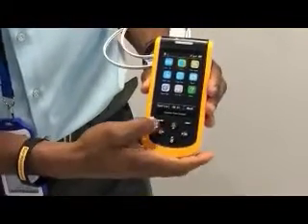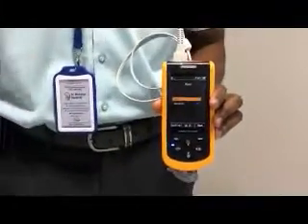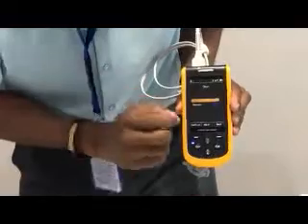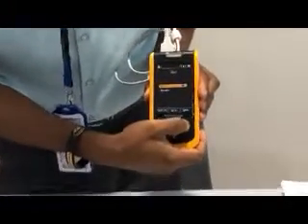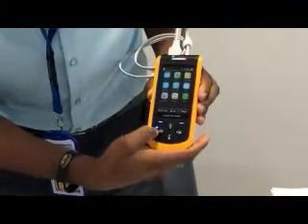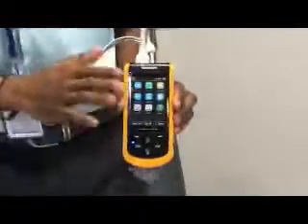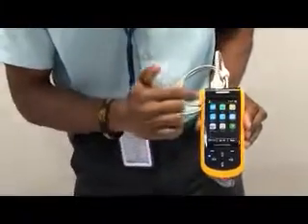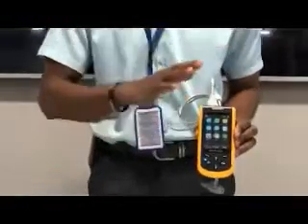I will move further to User and confirm this. This option is called the mode — do you want to use this equipment on neonate or on adult? You select it here. I can select adult or neonate. To select, click the confirm button. This goes to adult mode. Then click back and it returns you to the previous menu, the main menu. The most important thing you need to know here is just how to change your mode. Do you want the equipment used on neonate or adult? Just know how to do that.